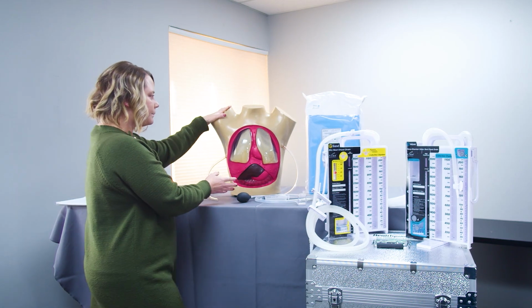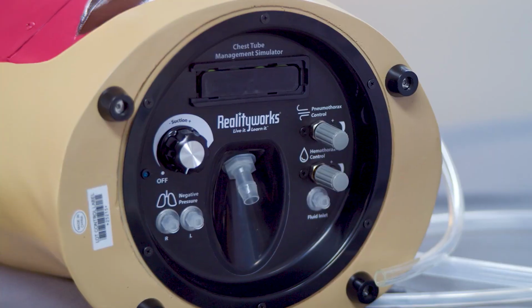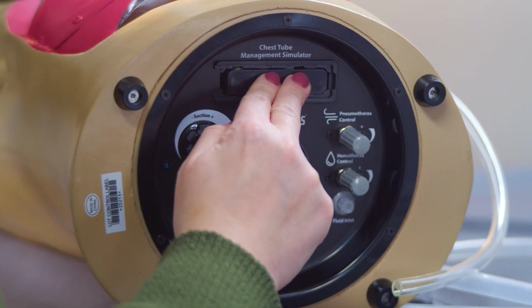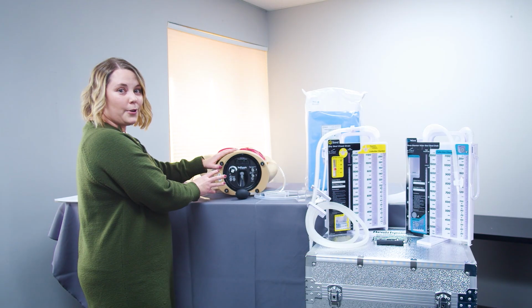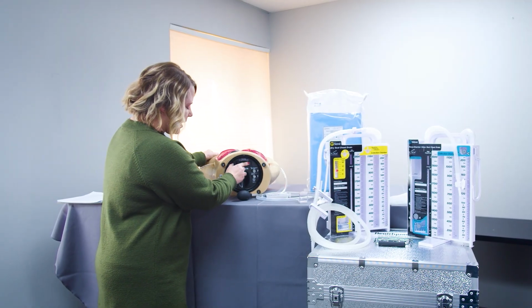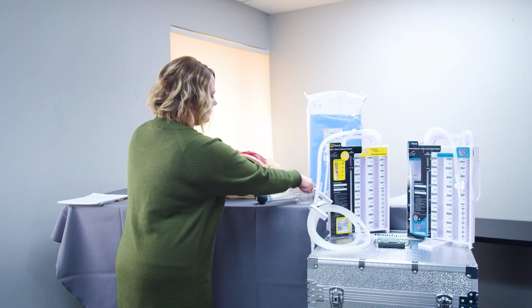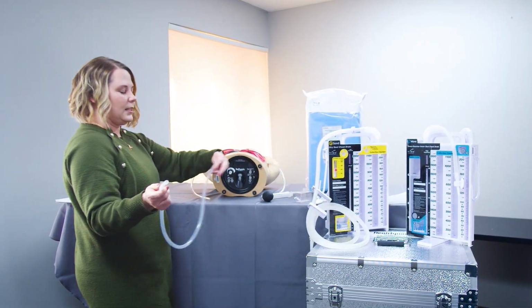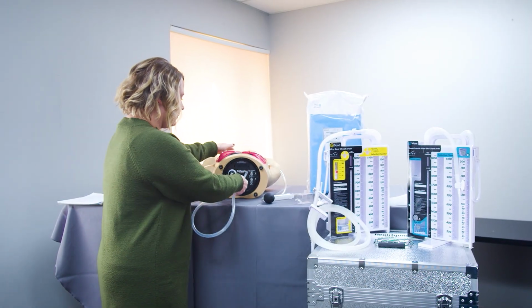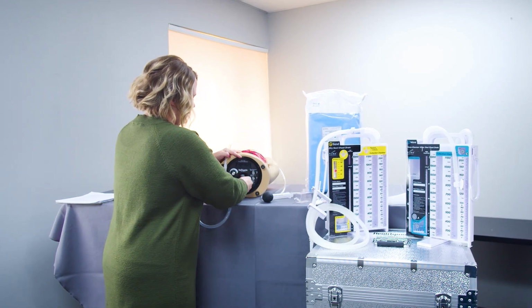When you're going to be using this chest tube system, it comes included with batteries and a suction pump internally. So that's great that you don't need your own suction system separately. And we've already got the batteries installed here. So what we're going to do to put this together is take the vacuum tube, and it's going to attach right here in the center. So I'm just going to snugly fit this on.